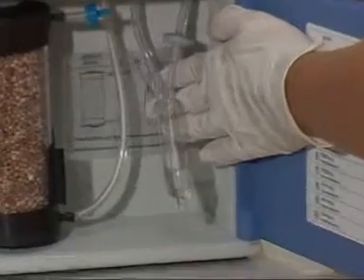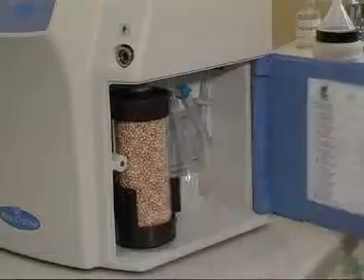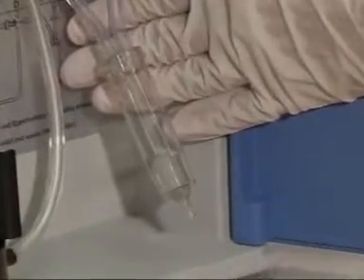The moisture trap should also be replaced on a regular basis — when it is half full at the latest. For reasons of hygiene, you should check how full it is once a week. Dispose of the moisture trap in accordance with local and national regulations governing the disposal of contaminated waste.